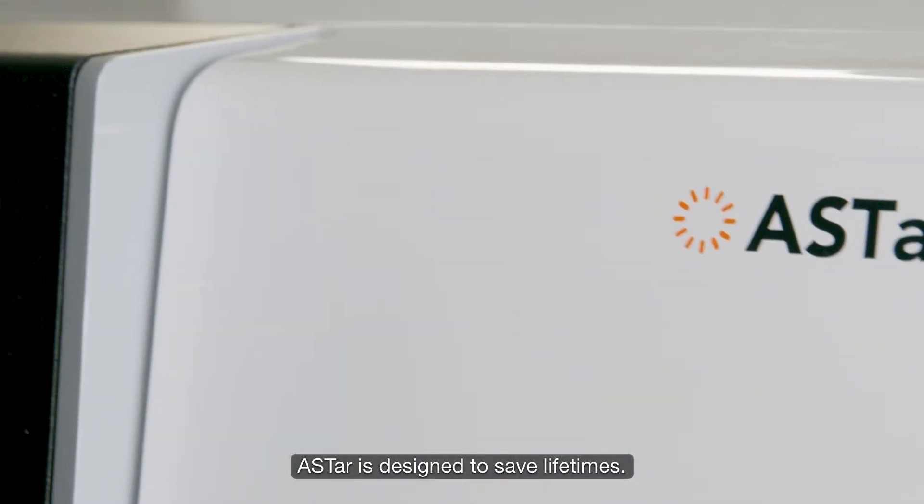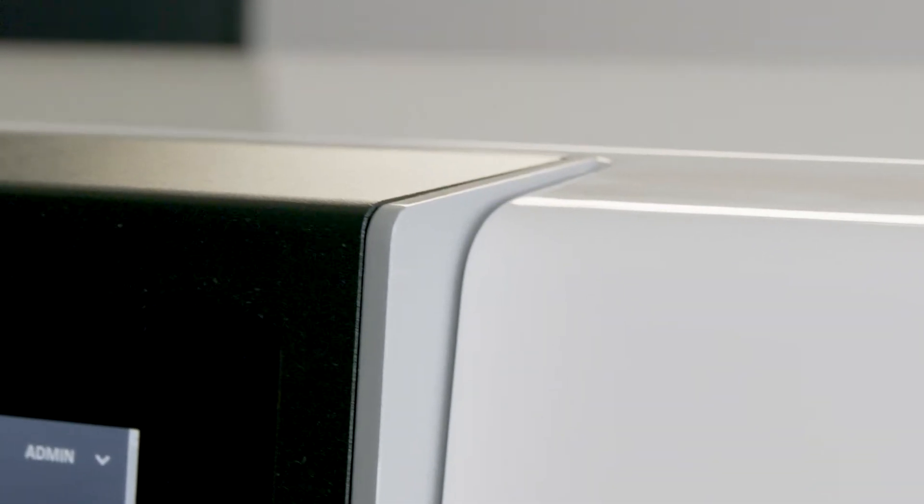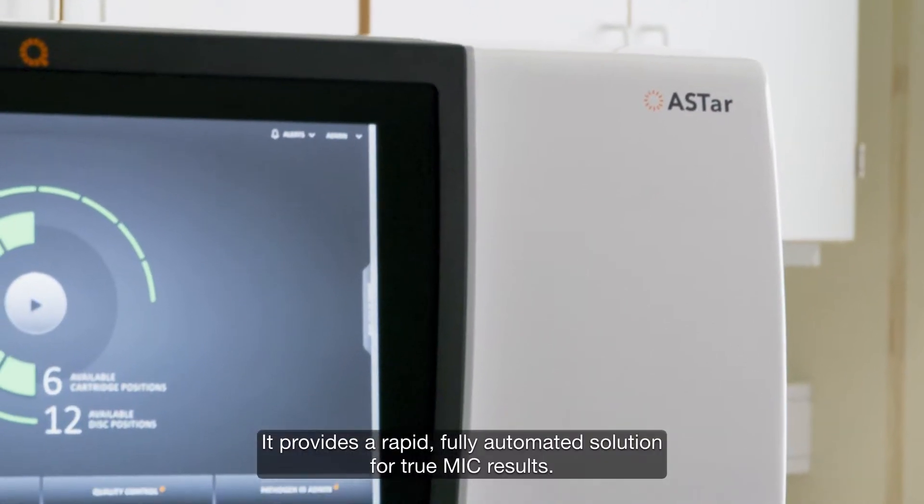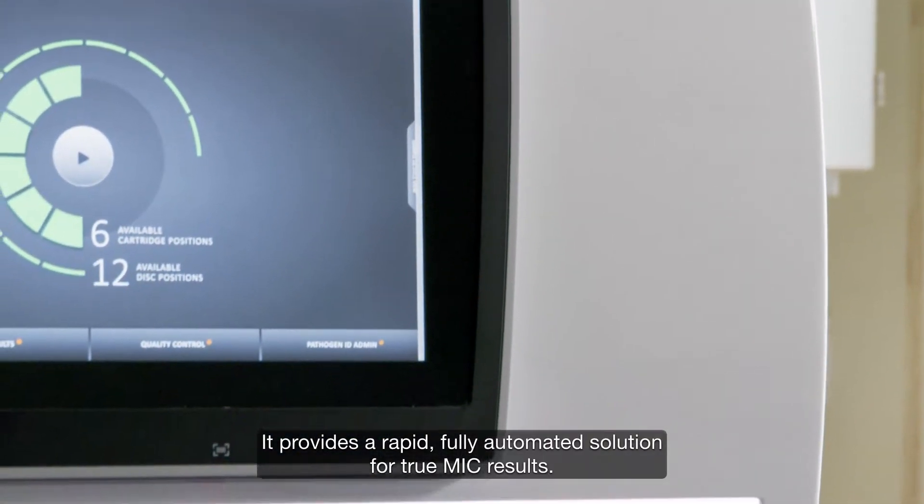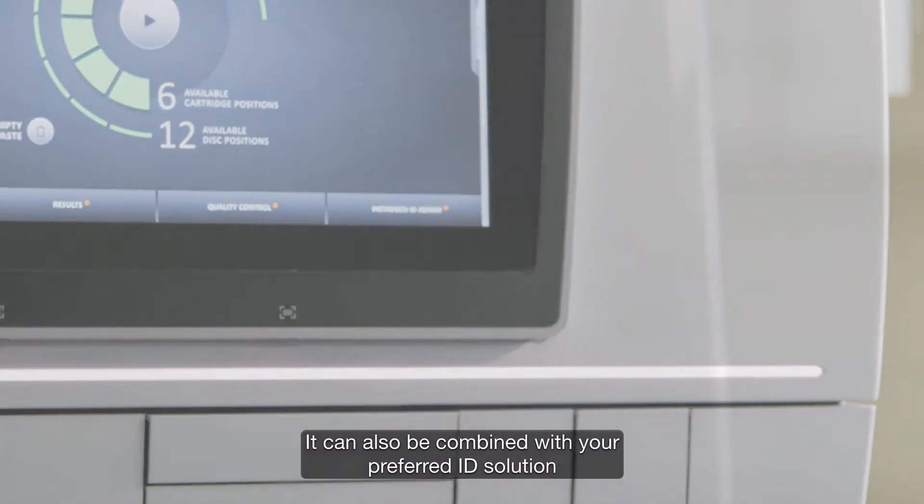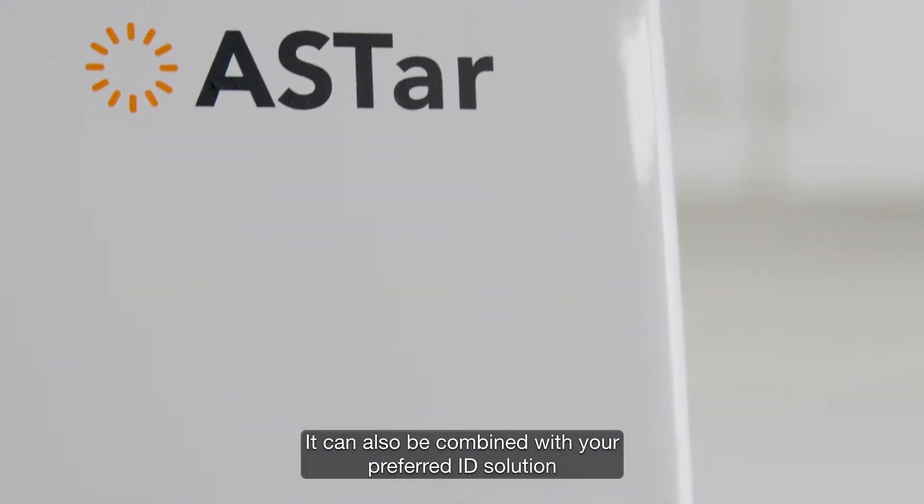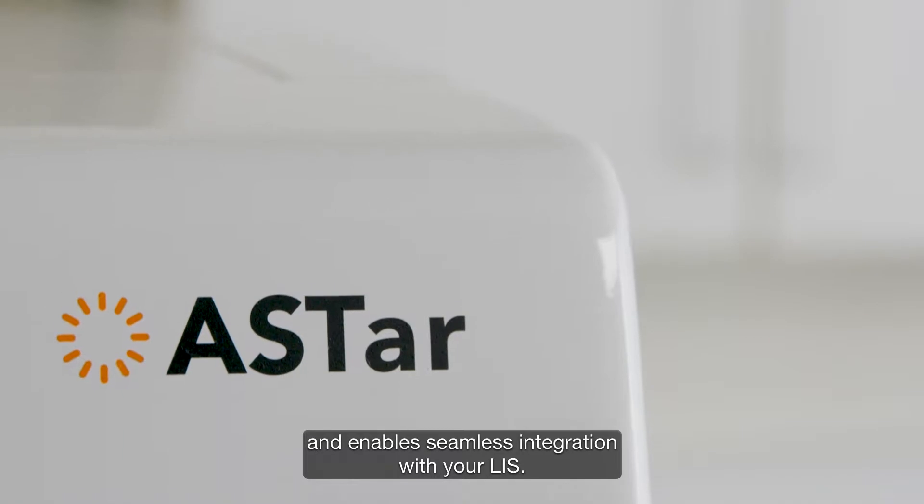ASTAR is designed to save lifetimes. It provides a rapid, fully automated solution for true MIC results. It can also be combined with your preferred ID solution and enables seamless integration with your LIS.